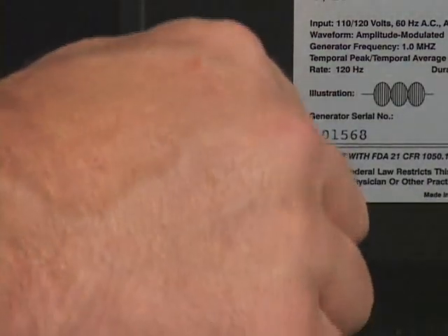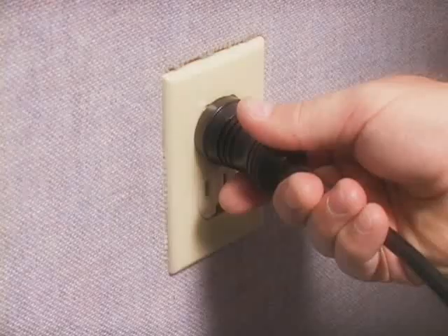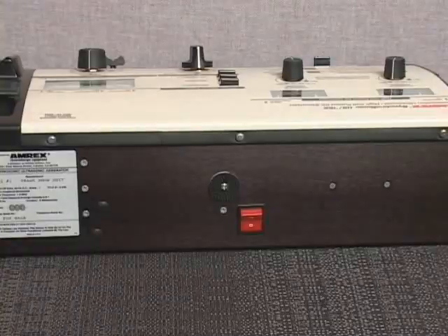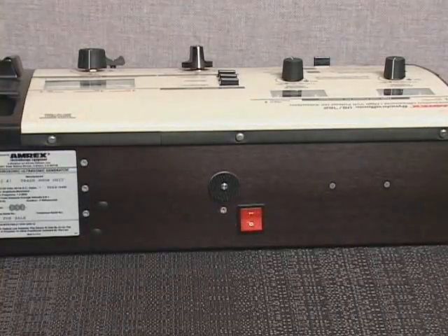In order to operate the U.S. 752 High Volt Pulsed DC Stimulator modality, you must first connect the power cord to the AC receptacle on the back of the unit and insert the power cord plug into a properly grounded AC receptacle. Verify that the main power switch, located on the back of the unit, is set at the ON position.